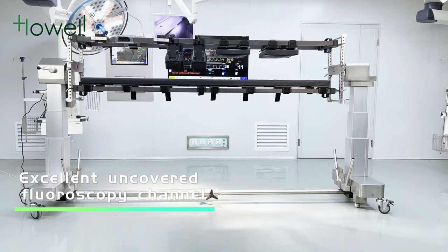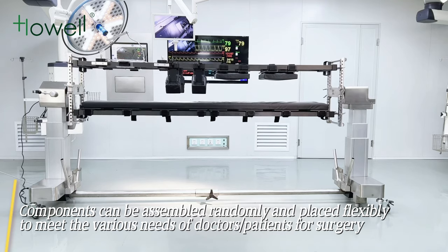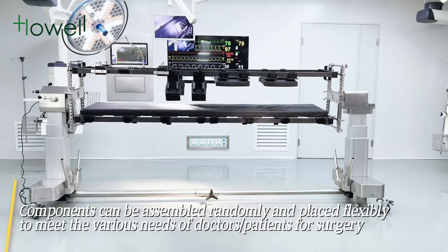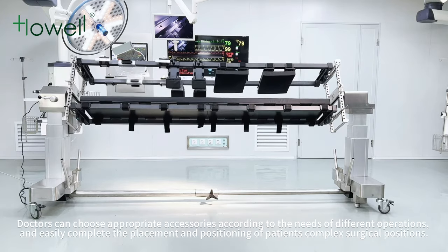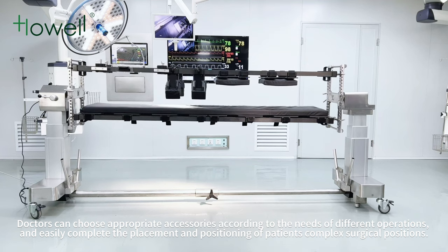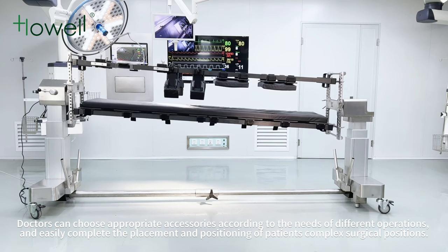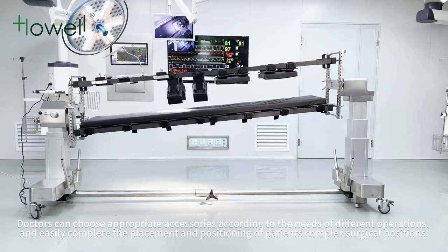The uncovered fluoroscopy channel components can be assembled randomly and placed flexibly to meet the various needs of doctors and patients. For surgery, doctors can choose appropriate accessories according to the needs of different operations and easily complete the placement and positioning of patients in complex surgical positions.